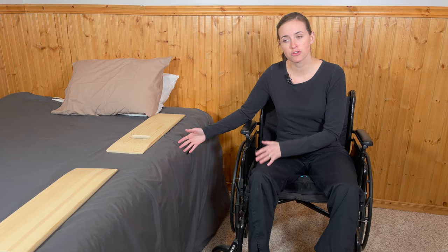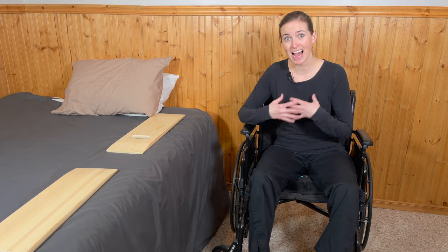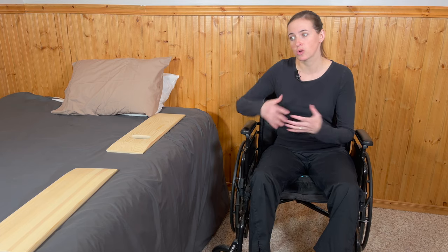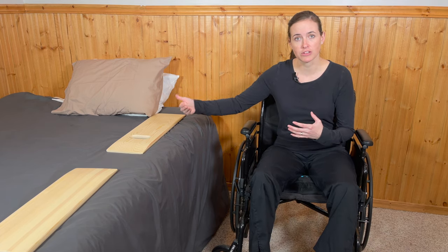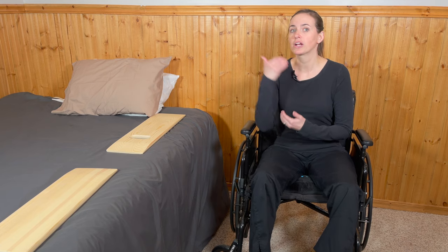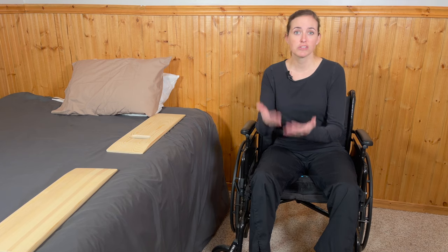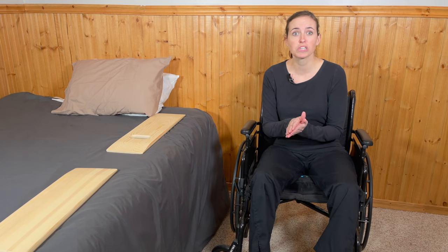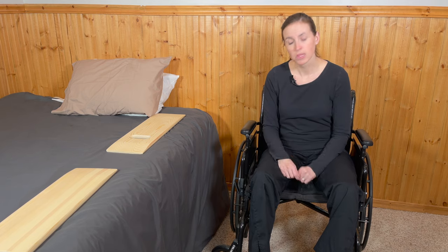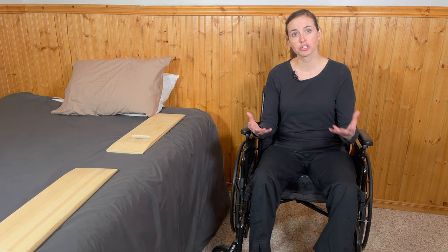I'm going to show this on a standard bed. I have full use of my body, so I'll try to highlight areas that might be challenging for somebody who doesn't have full function. Know that this is a tricky transfer that requires a lot of training and practice under the guidance of a healthcare provider, so please always use a good therapy team initially because there is a bit of a learning curve. Let's get started with the wheelchair setup.